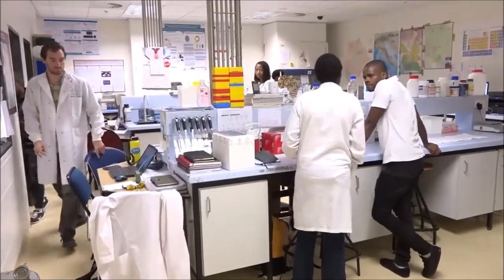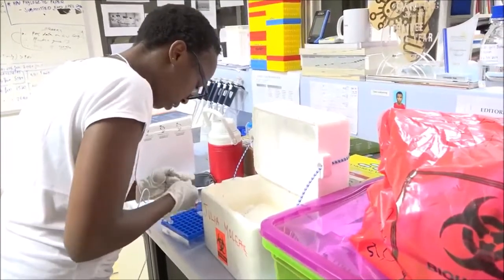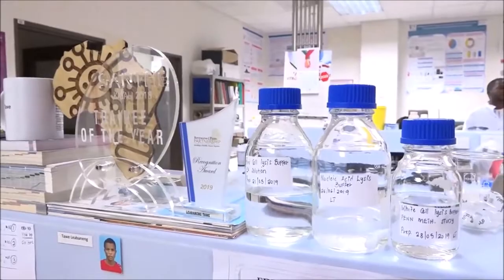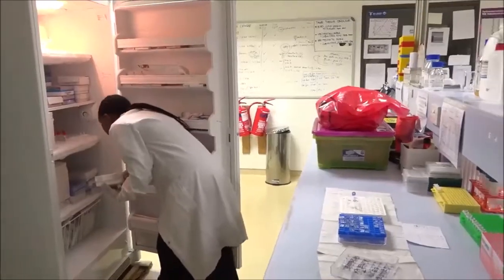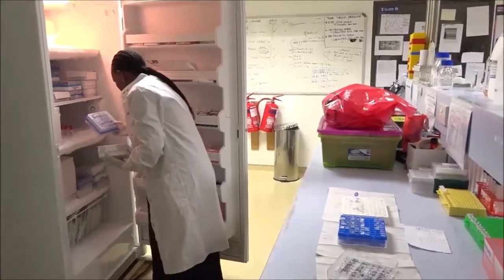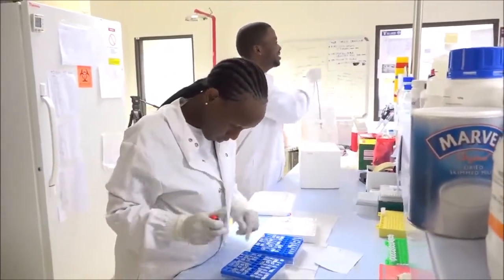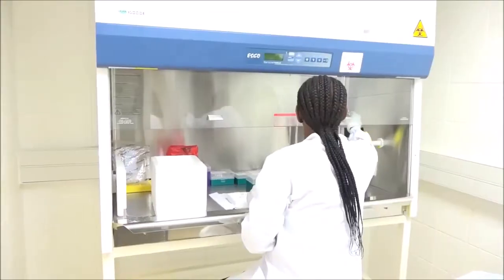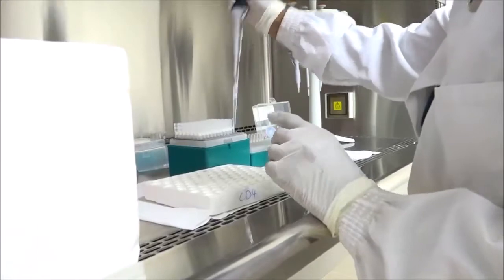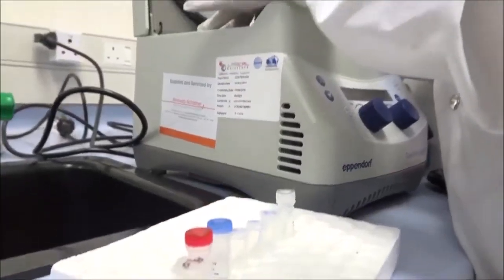The University of Botswana prides itself with the state-of-the-art Molecular Genetics Laboratory. The caliber of research assistants housed in this lab points out the university's specific will to advance knowledge and understanding through excellence in research and its application. The Molecular Genetics Laboratory provides expertise in DNA and molecular genetic testing for both congenital disorders and hematology.